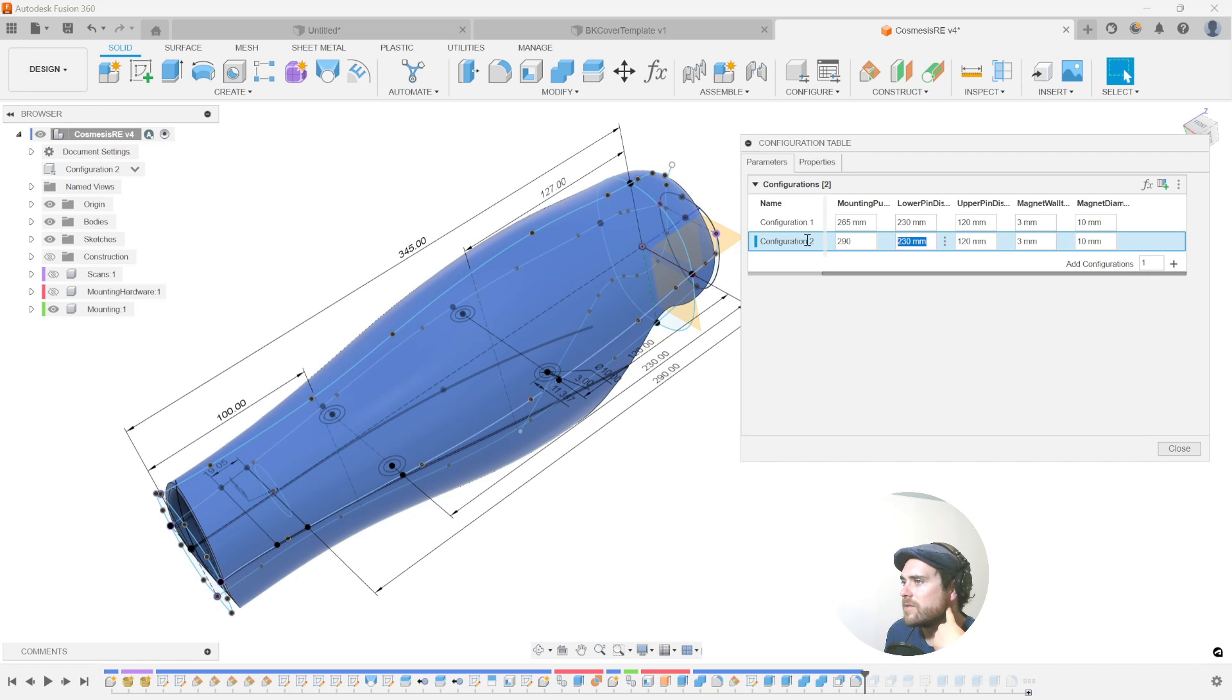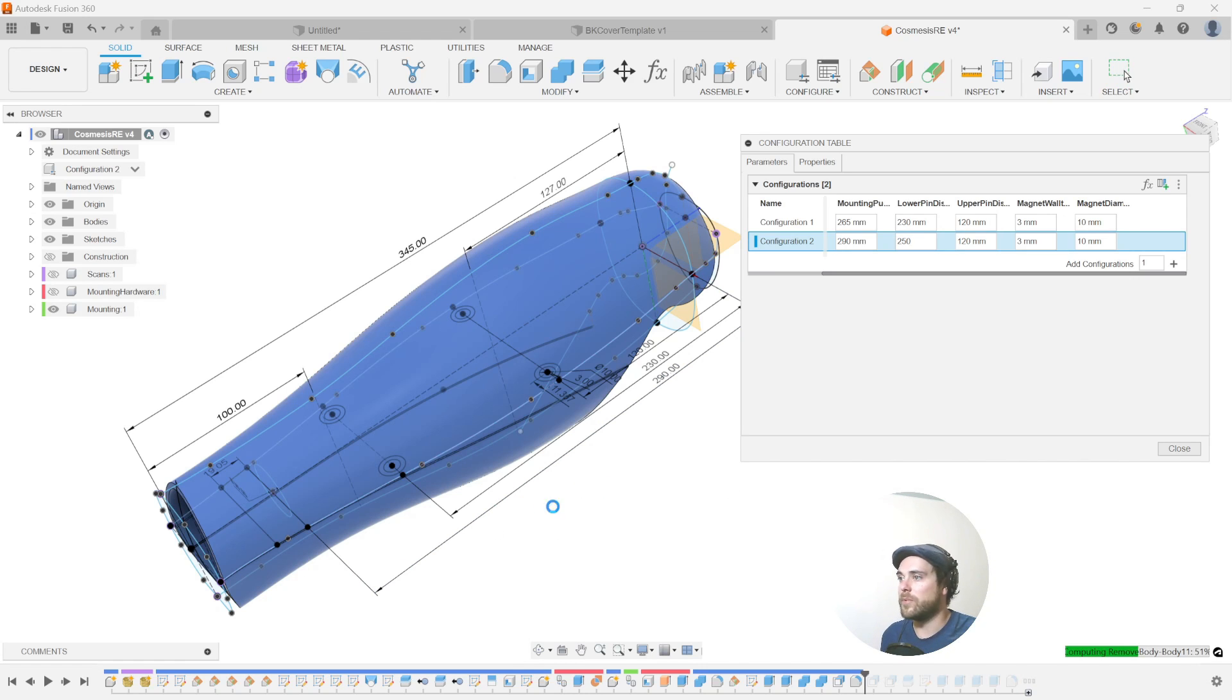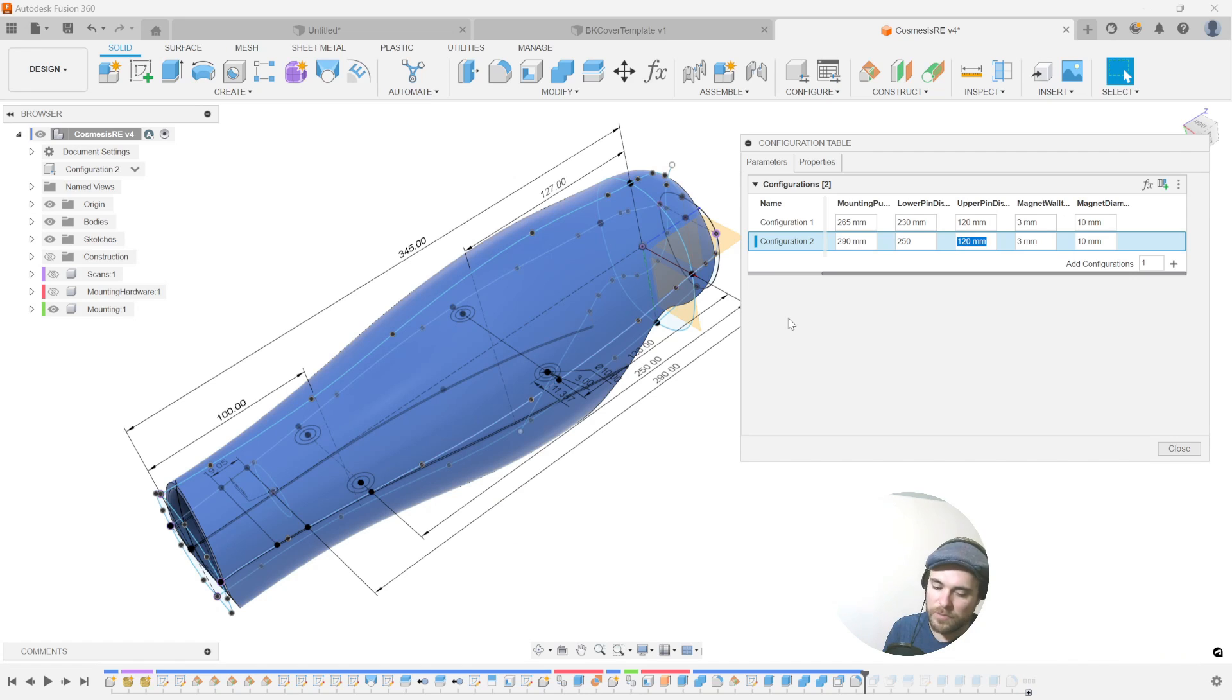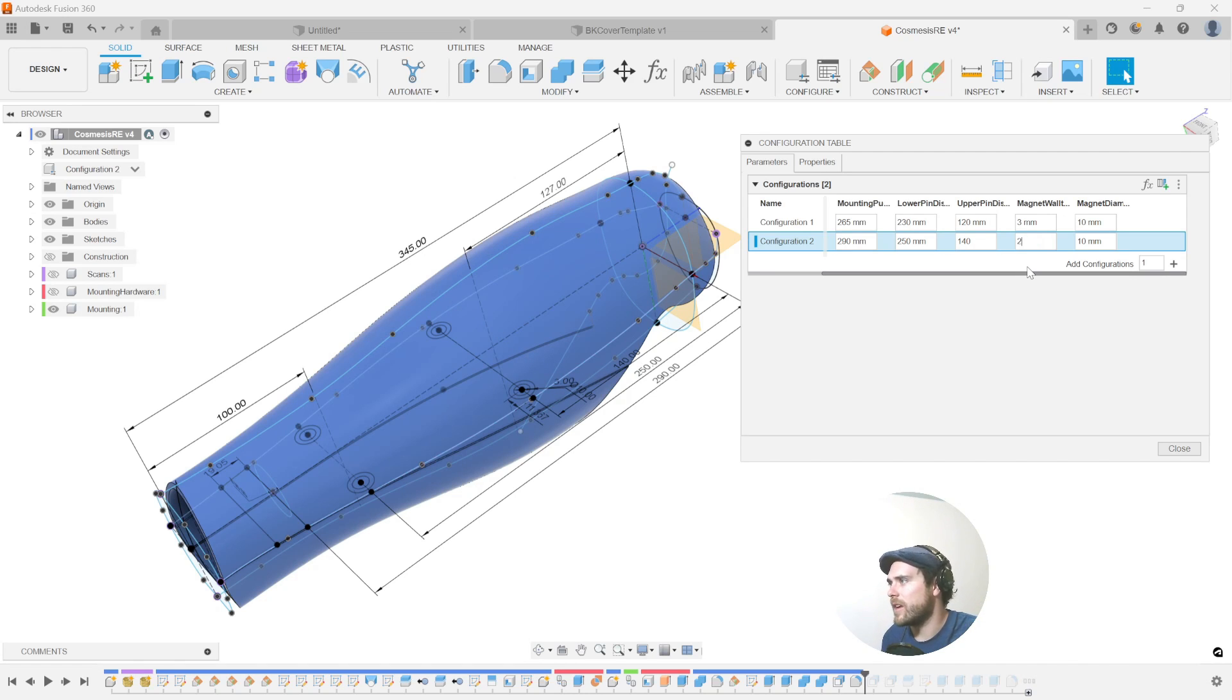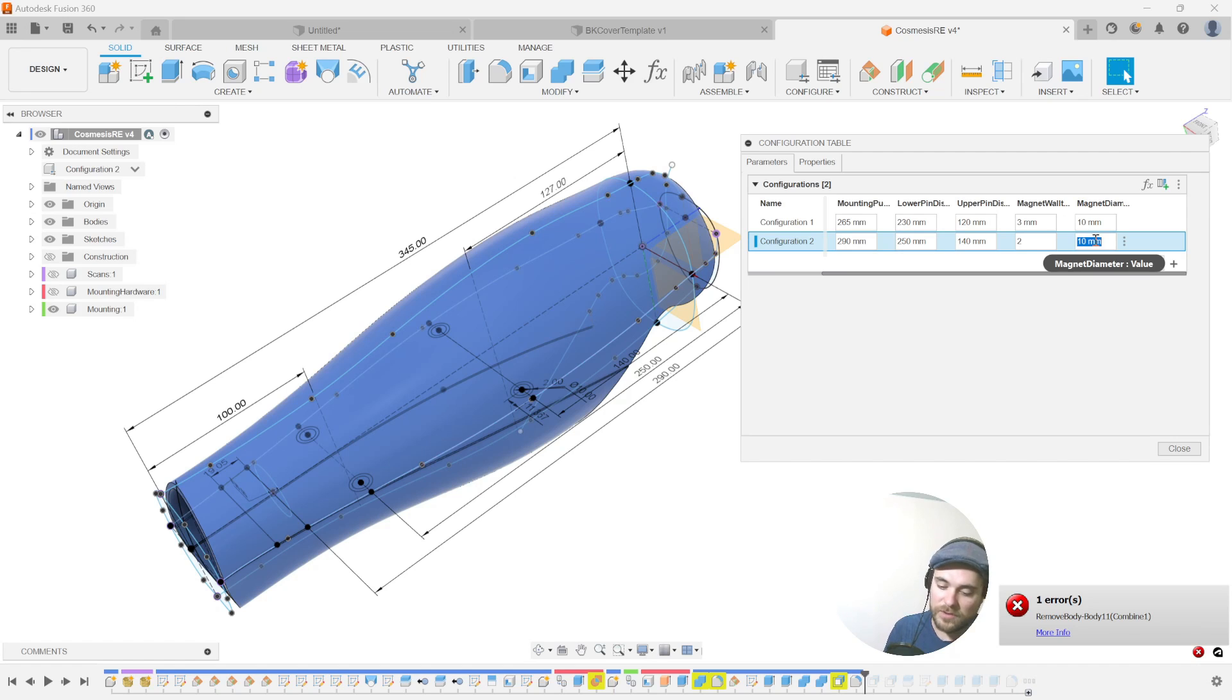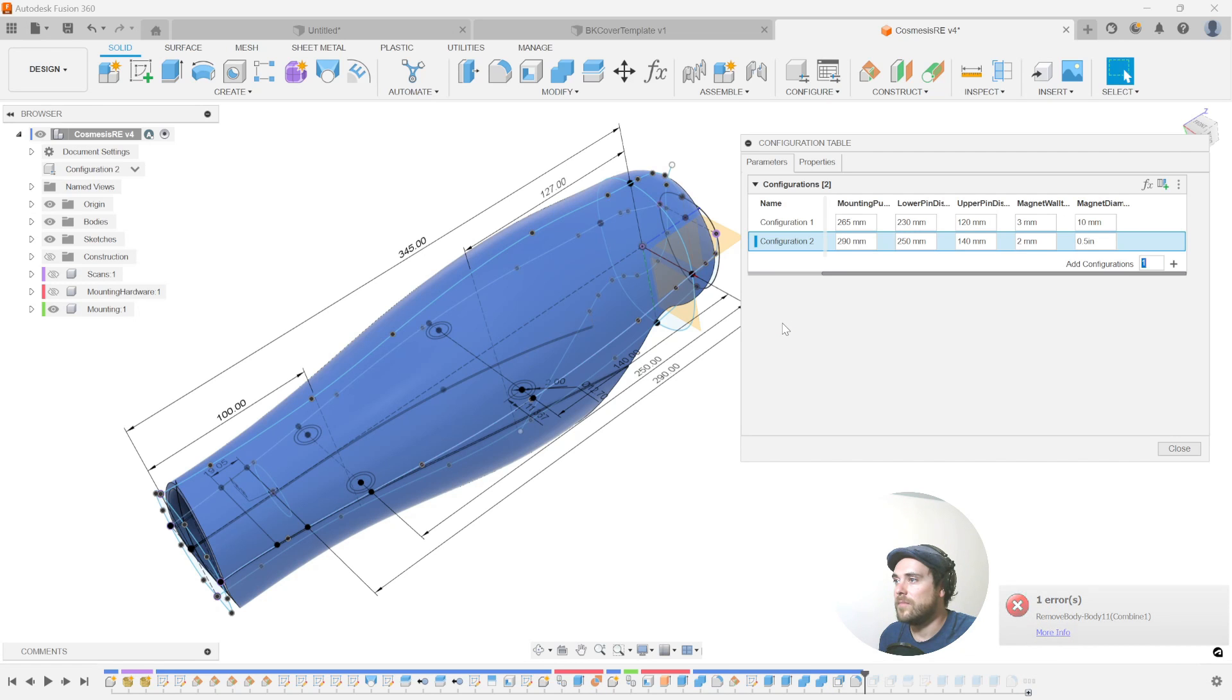We can take that off. I don't think we need any of those generating for this next version. So the lower pin distance of 230, why don't we try changing that to 250. And this would be a bump out in response to some sort of reference. So think of a scan or a photo even. The upper pin distance, let's try making that 140. Magnet wall thickness, maybe we find out that we don't want to have full three millimeters. That's actually a bit overkill. So let's try two millimeters for the magnet wall thickness. And then afterwards, too, we have different magnets we're trying. We have half inch magnets as well. So let's go 0.5 inches for the magnet distance, the magnet diameter, sorry, of this next build.